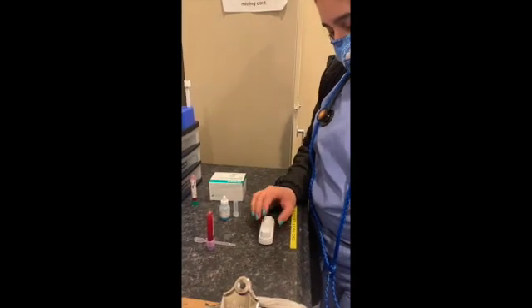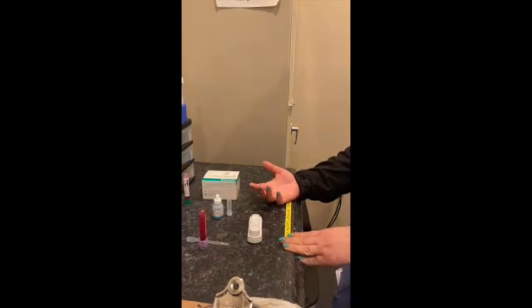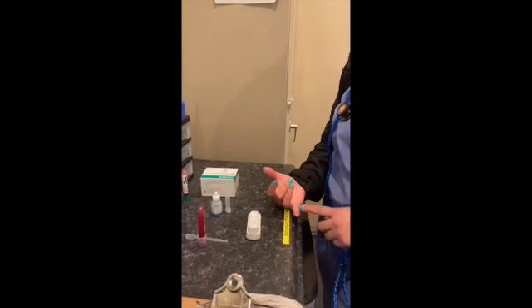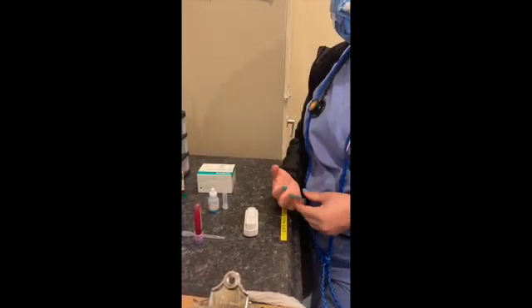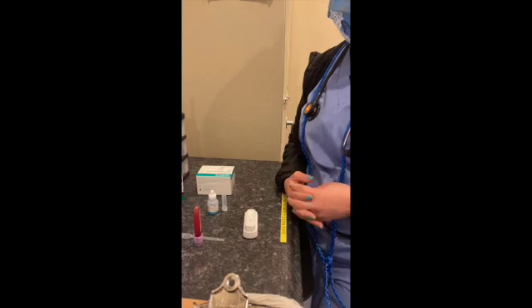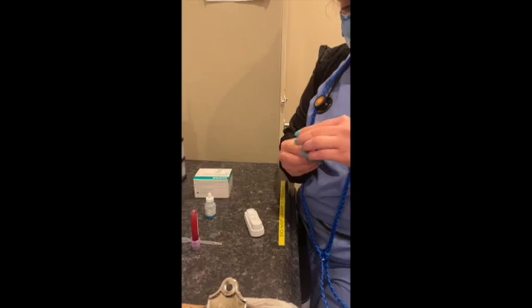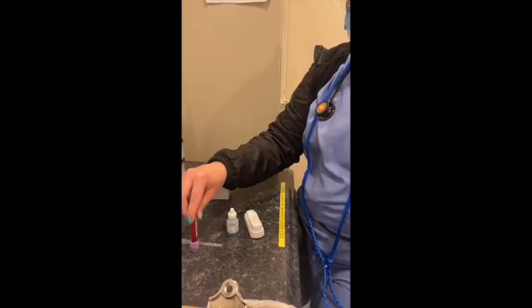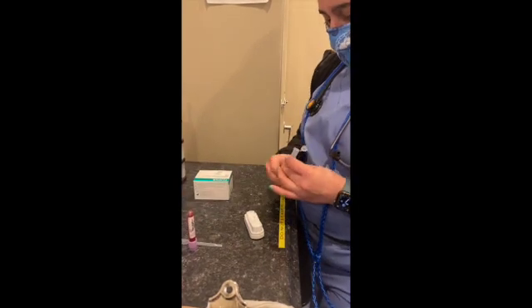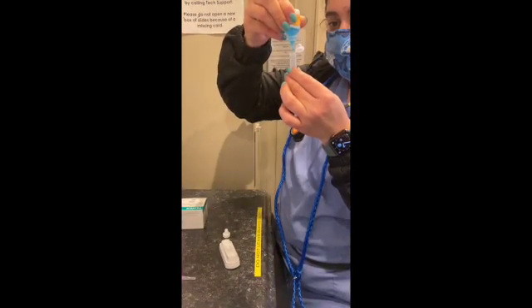So we're going to be doing a 4DX plus panel snap test, which is our ELISA test. We're testing for heartworm, Lyme disease, Ehrlichia, and anaplasma. So we get a little test tube thing, and we're gonna do 4 drops of the conjugate and 3 drops of the whole blood. And we want to make sure it's straight down, so all our drops are the same.